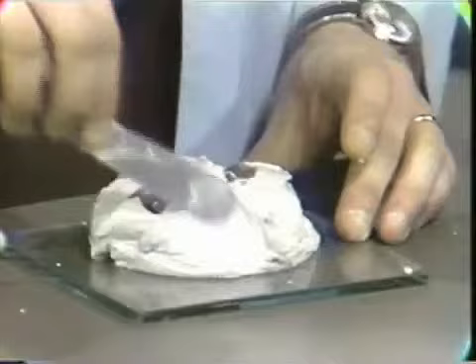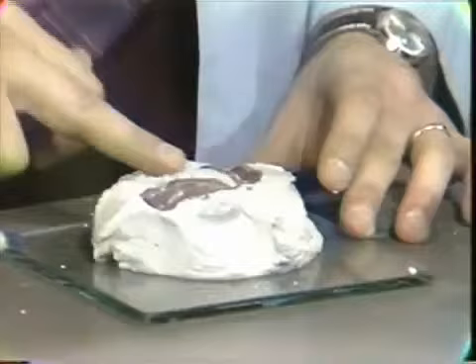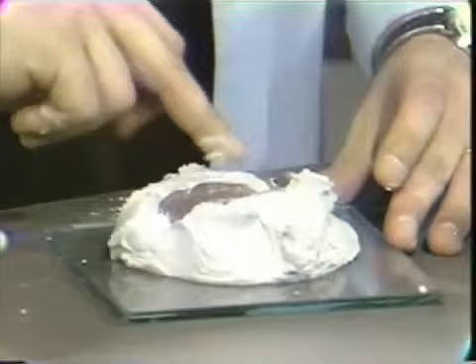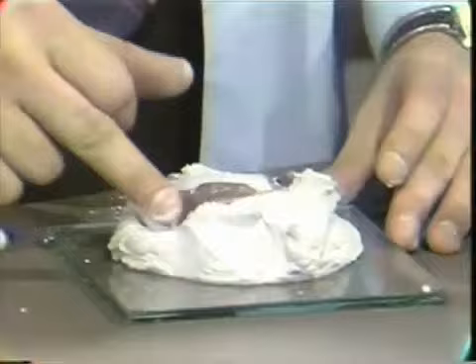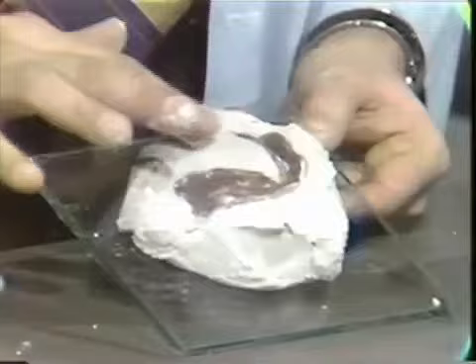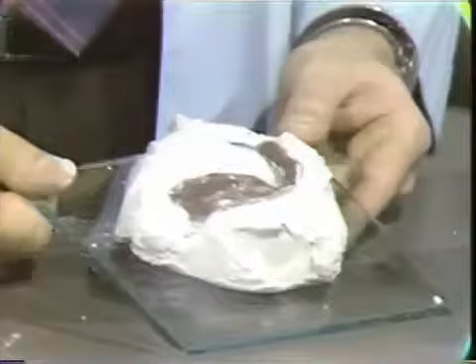At this point you can take your finger and begin to fill in the tongue space. Then go around the entire periphery of the impression, exposing enough of the flange so that you will end up with an adequate boxing edge on your master cast. It's not particularly important if some of this material should inadvertently get into the impression, because you can simply rinse it with water and this material will come right out.